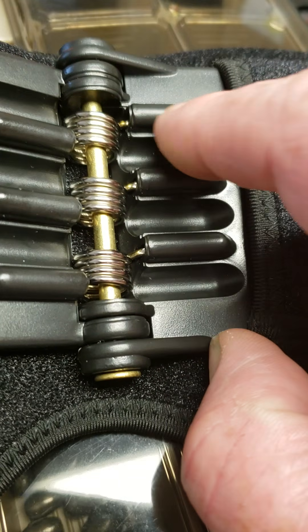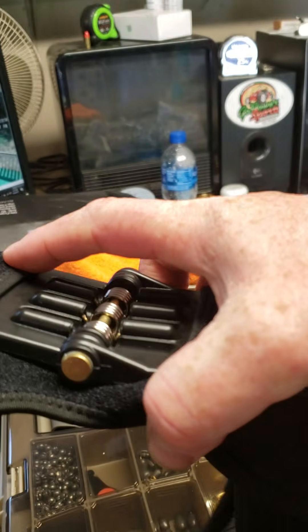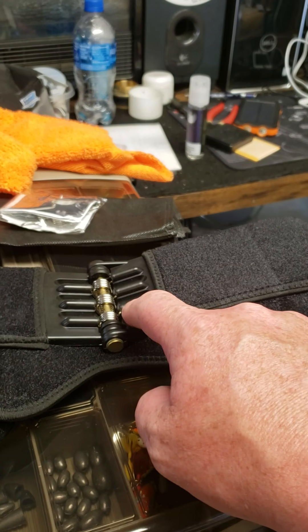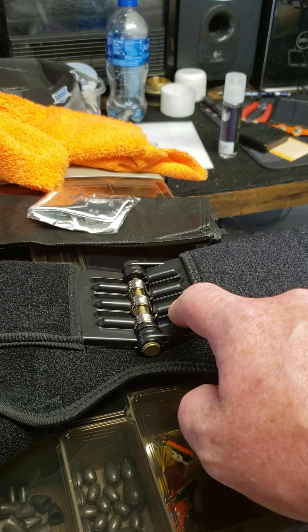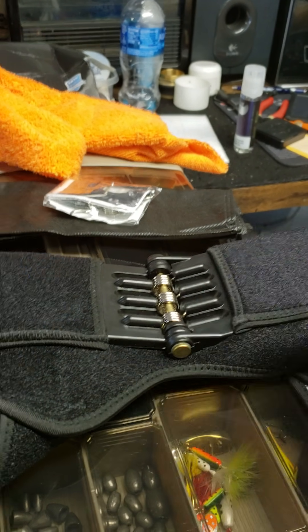They go up inside this hole here in the ABS. The problem I noticed is that there's tension on it right there, but with how big this is in here compared to the little spring strut — which is about the size of a G-string on a guitar — this is a lot bigger in here.